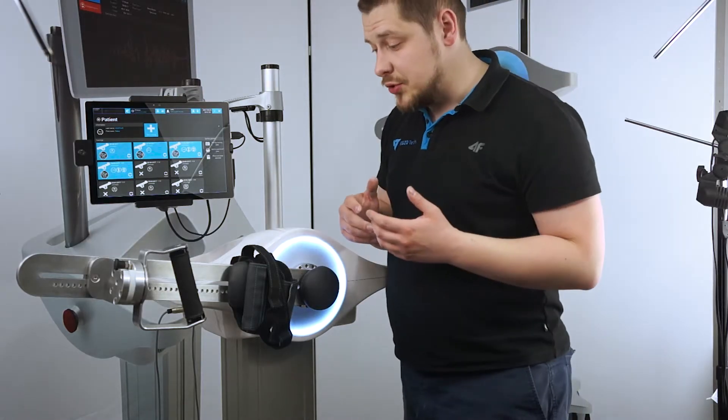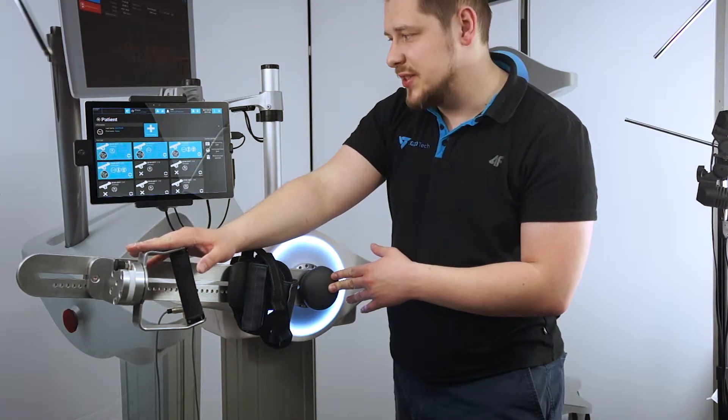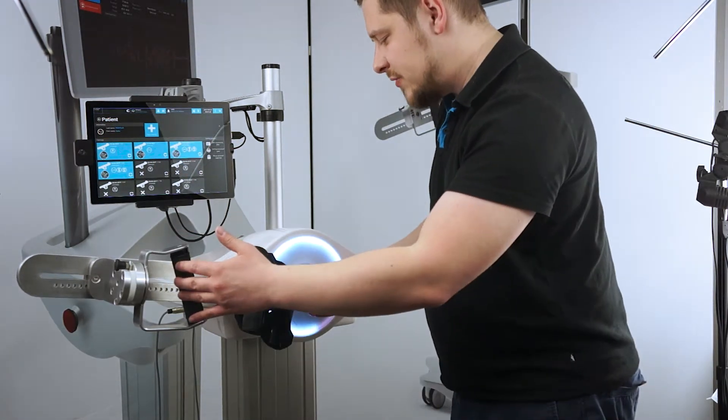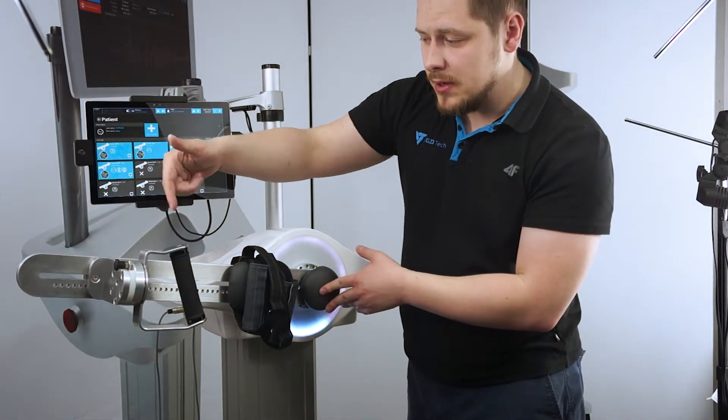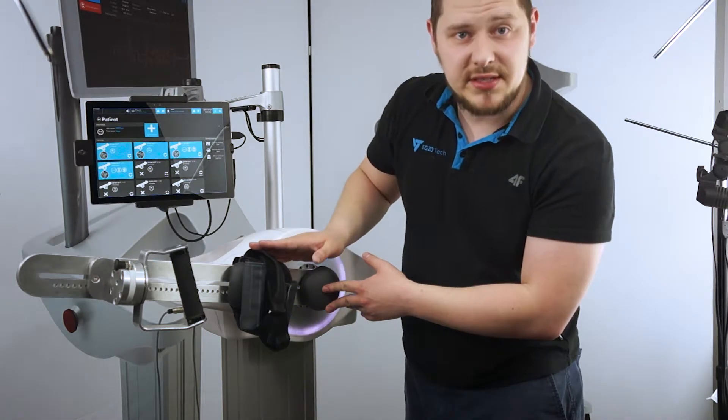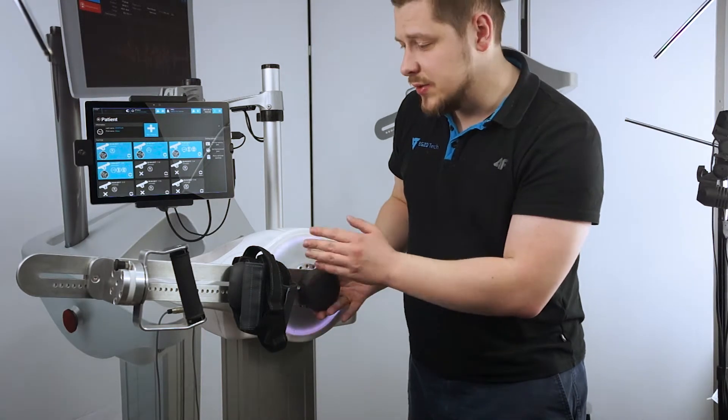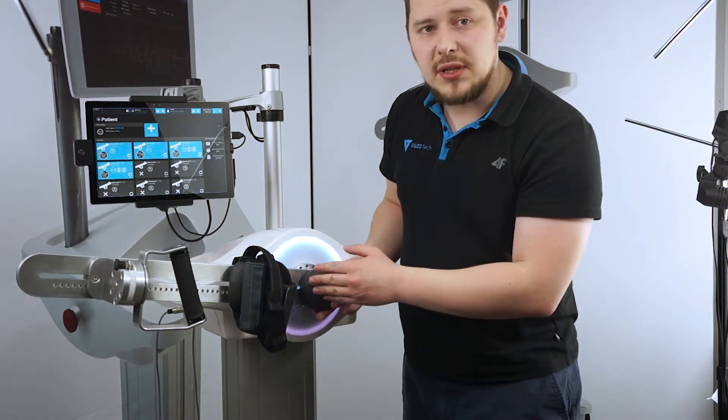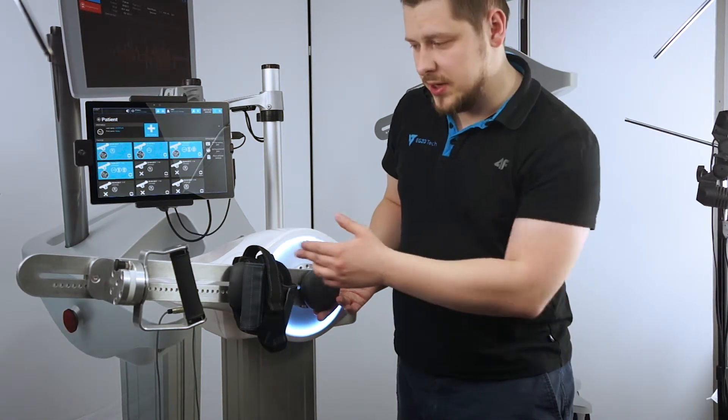Sometimes after training, the extensions will not be in an upright position. It will remain where it was last being used, and if we disconnect the electromagnet, we can have trouble pulling this out. That's because there is momentum and force going downwards because of the weight of the extension itself. The electromagnet is released, but there is still friction enough so it becomes difficult to pull it out. In order to do that, we normalize - we minimize the torque that the extension is doing because of the weight.